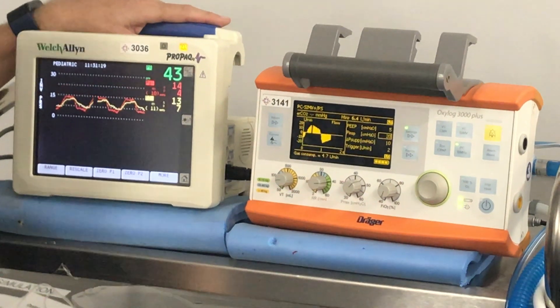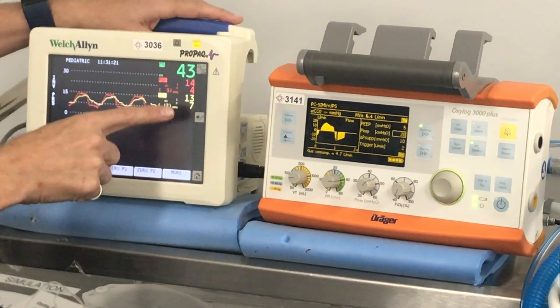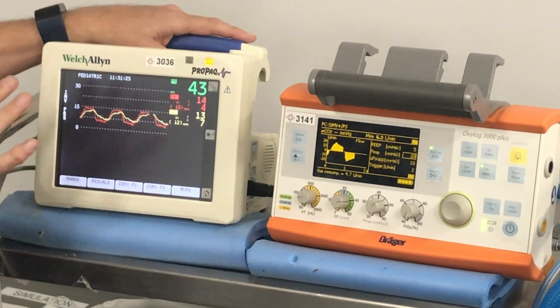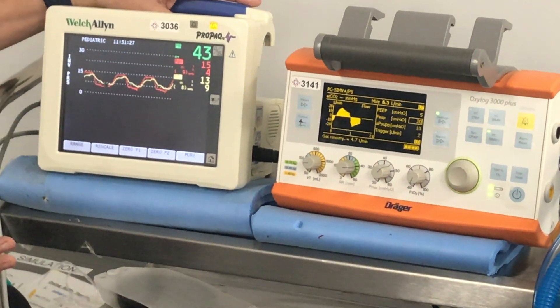Even on a big 5.5 tube, you can see there is a difference between what it does pre- and post-tube. But generally it ventilates well on those kinds of tubes.